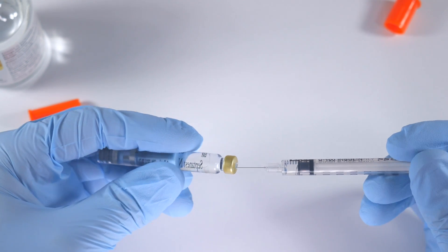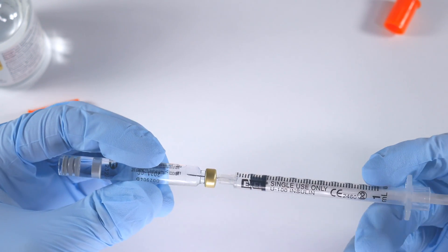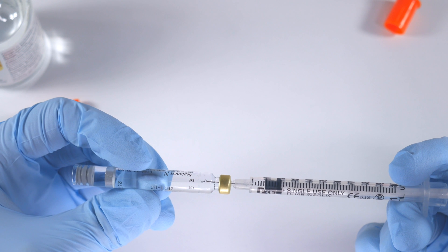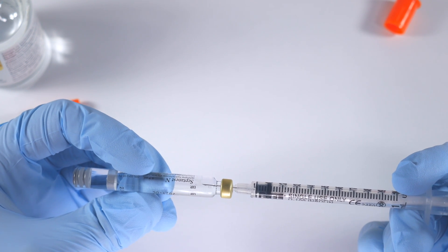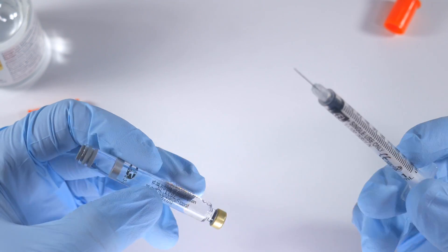So when you put this in, you insert it into the carpule - oh there we are - and all you do is just express it in. You're going to see some little bubbles that form - there they are - and you're done.